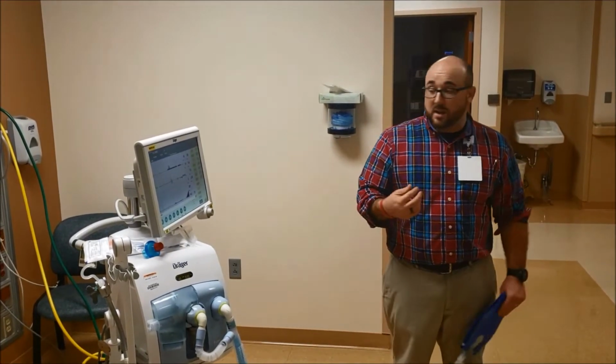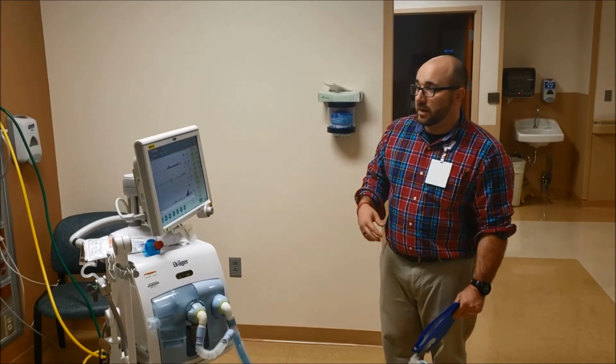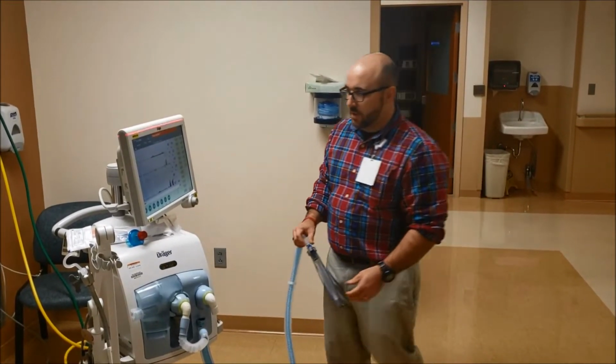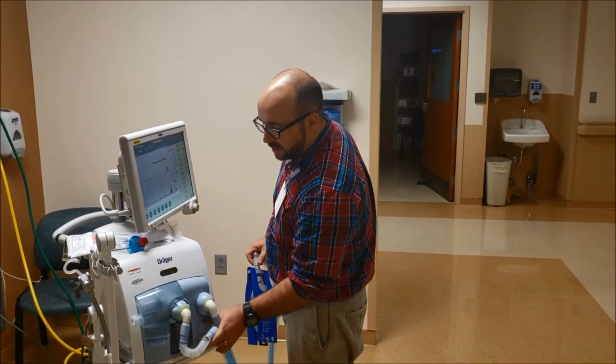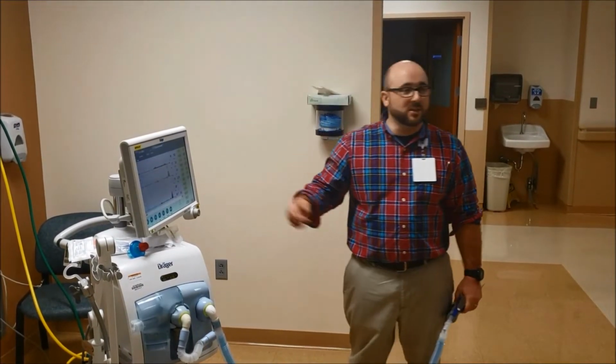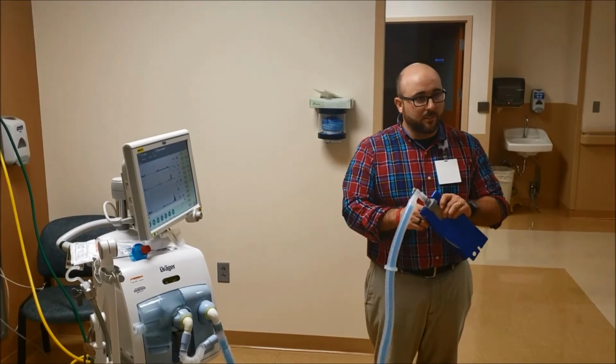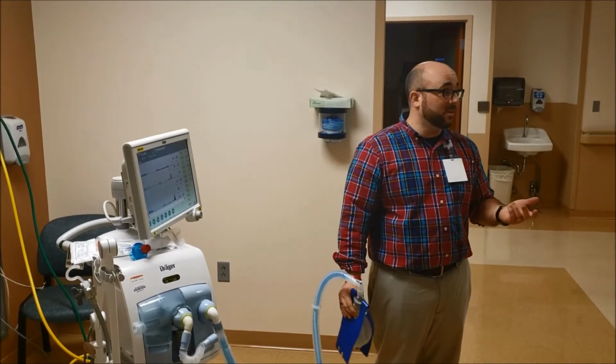It's going on fine. So commonly what I would do if I'm going to extubate, I'll get all my stuff ready. I'll go through the teaching with the patient. I'll reach over, hit manual disconnect, and then I'll say, okay, now we're going to take the tube out. Take a big deep breath in. That is really key too.